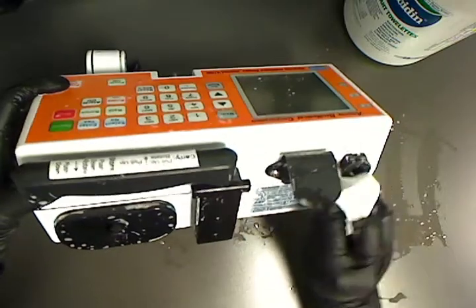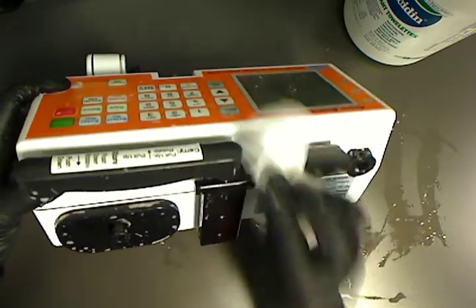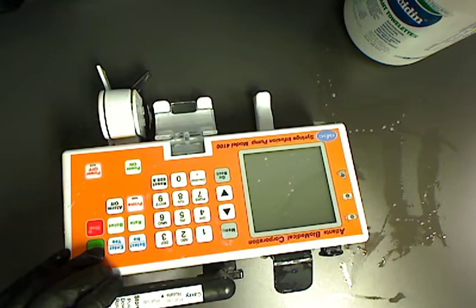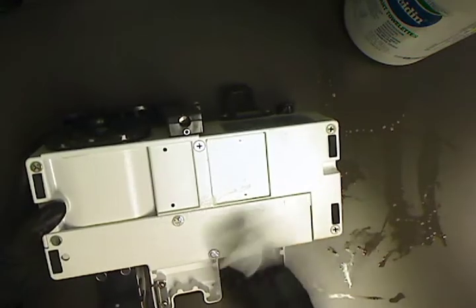If you need to use more than one towelette for the cleaning please do so. Main thing is to clean all the surfaces to remove any contamination that may have been on the unit.